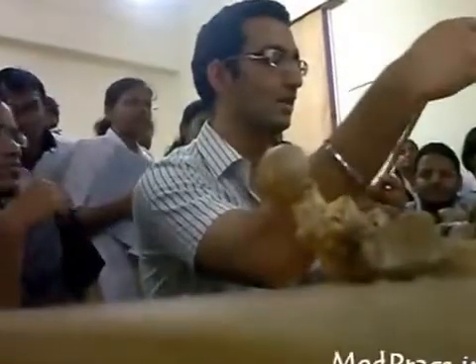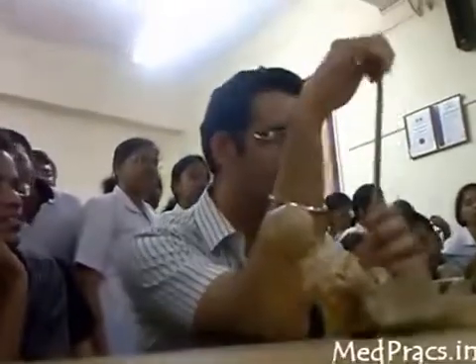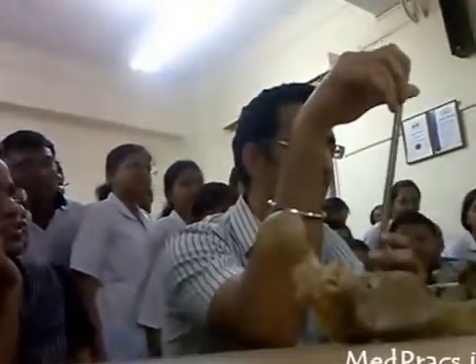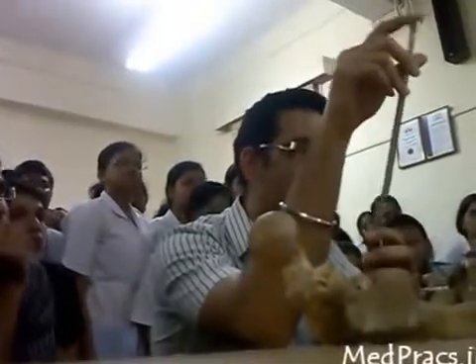The amount of implants being shown here is something which is absurd, but these are things you should know. This is the Kuntscher nail — K-U-N-T-S-C-H-E-R. The cross section is what makes it unique.